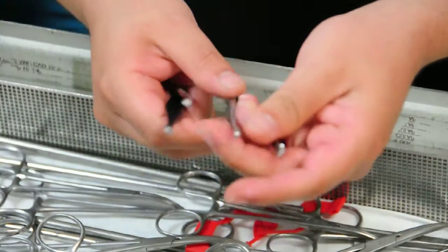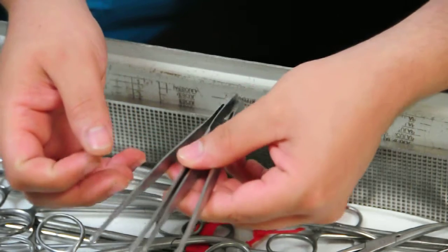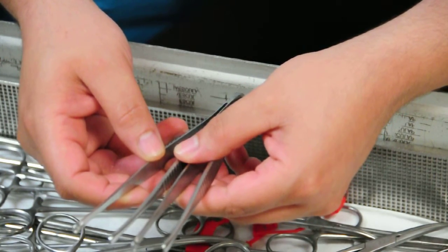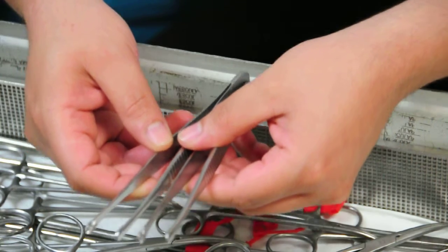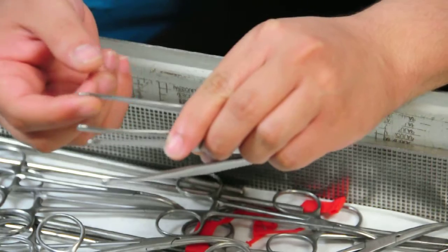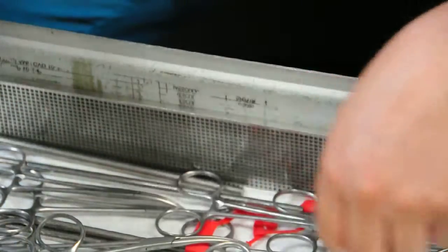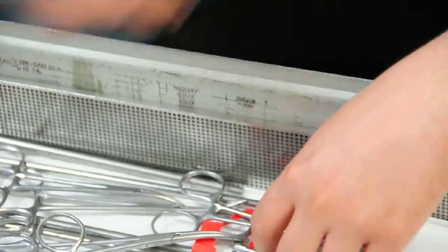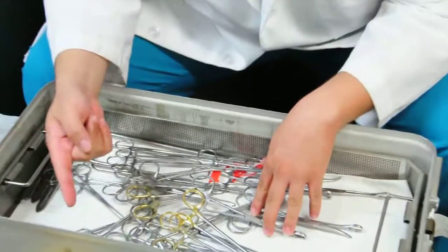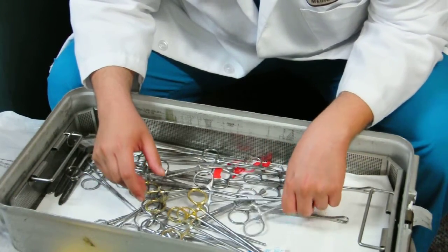These are Russians, which you generally use during a C-section. You can use them to grab and close the hysterotomy incision and to close the peritoneum. Other pickups are the DeBakeys, which are smooth pickups — we don't have those here — and those are what you use in GYN surgeries.